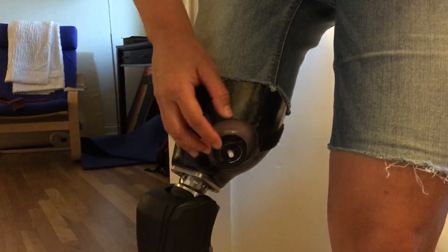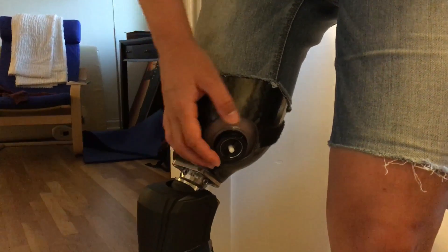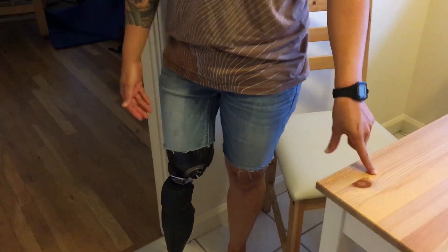I'm a physical therapist for my job, and I noticed when I was working with patients that sometimes the table, the mat that they're on, or even the patient would hit that button, and it would cause an air bubble to go in there. It's just not comfortable.